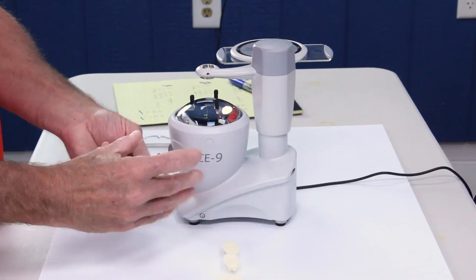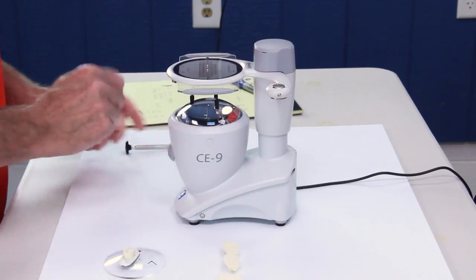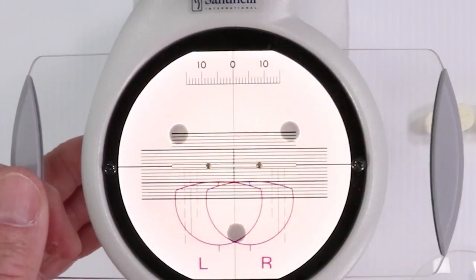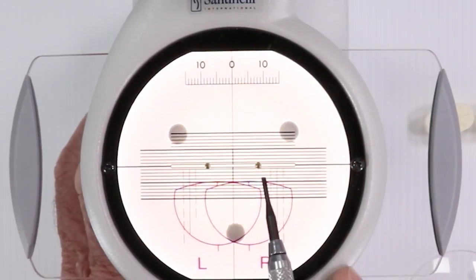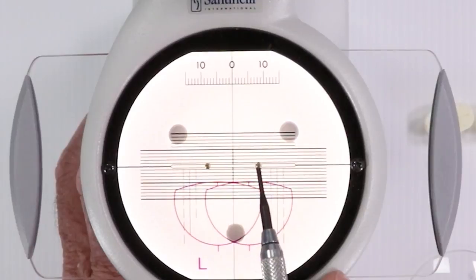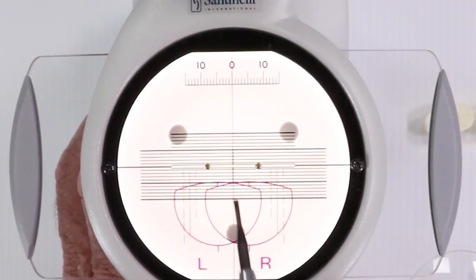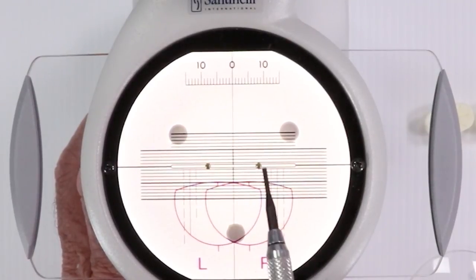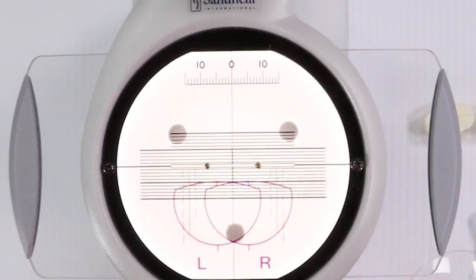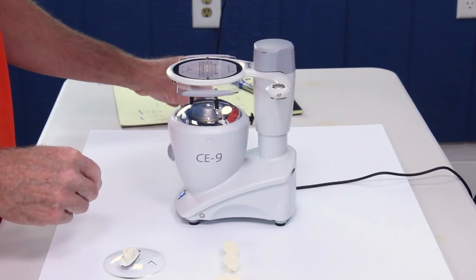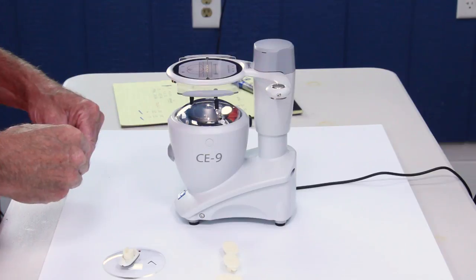And that looks wonderful. The thing I meant to mention, and I forgot. These are just inherent in the design of this particular blocker. They do get in the way. I know that makes it a little bit difficult sometimes to see exactly what's going on behind them. But those are not part of the marking device or the grid system. They're somehow inherent in how everything's held together. So, sorry, but that's the way that is.